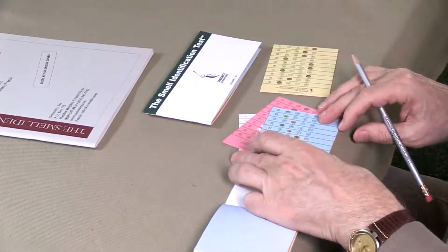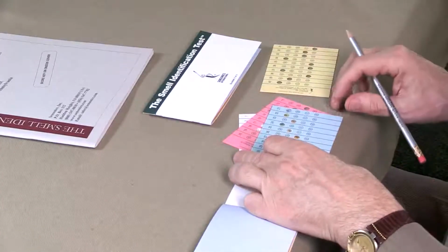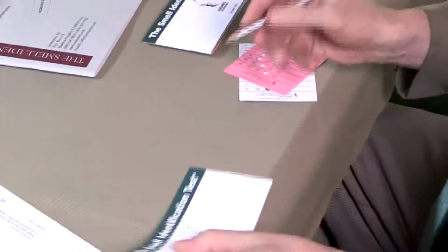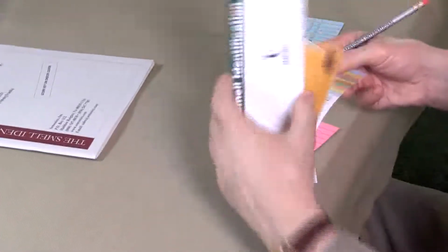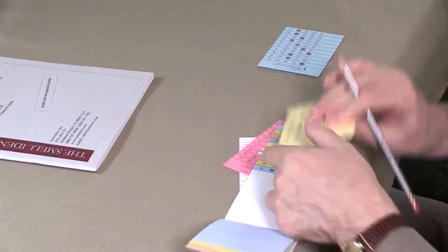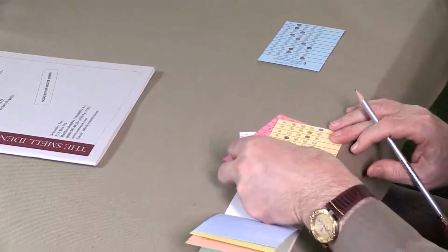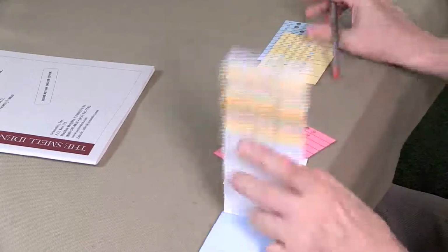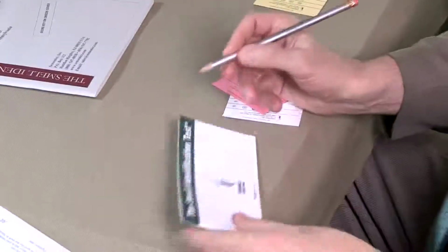In this case, all of the items were correctly answered, so we'll say 0 missed. And then finally, on the fourth booklet, we'll see if any of the items were missed, and it looks like in that case, they were all done correctly. So again, it's a 0. So what we do is we have a total score out of 40. In this case, this individual had a 37.